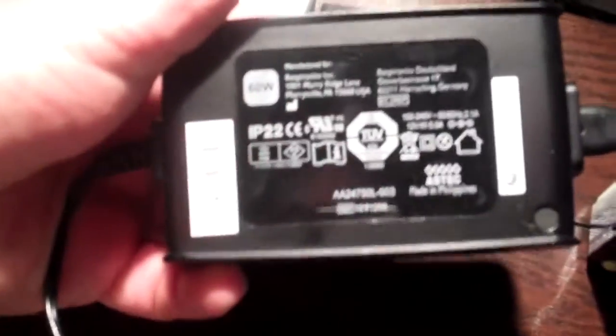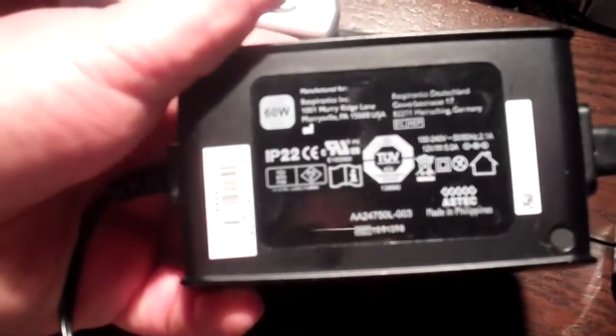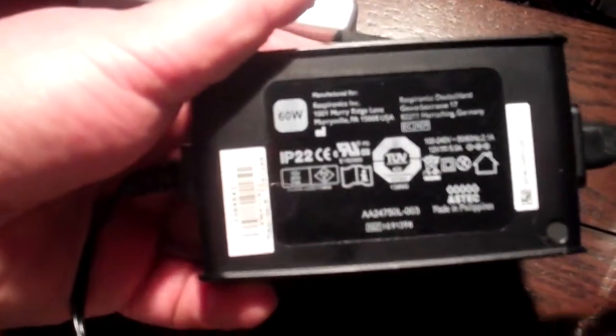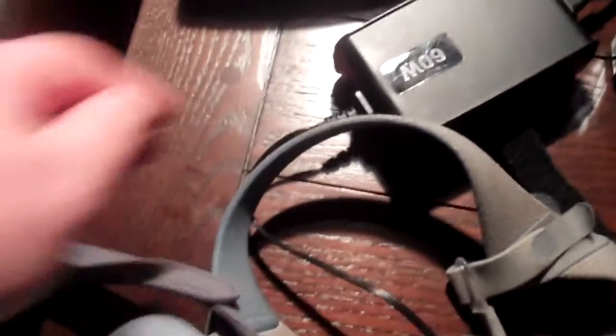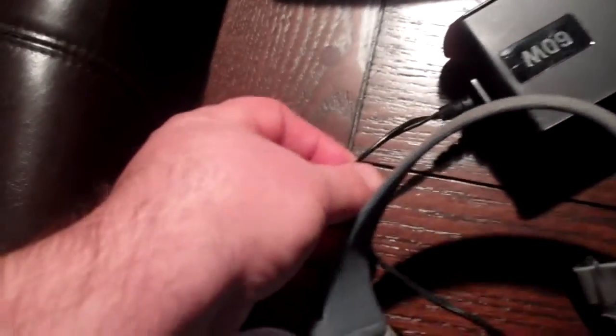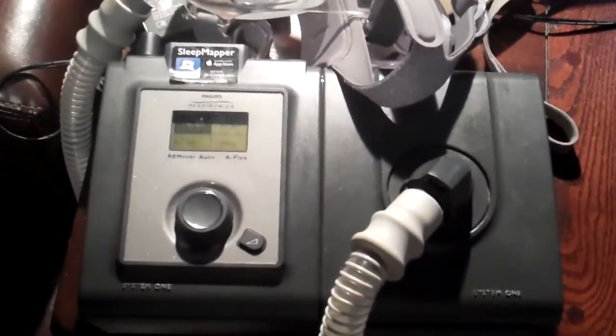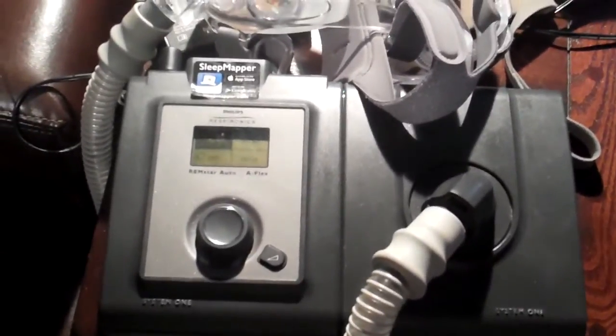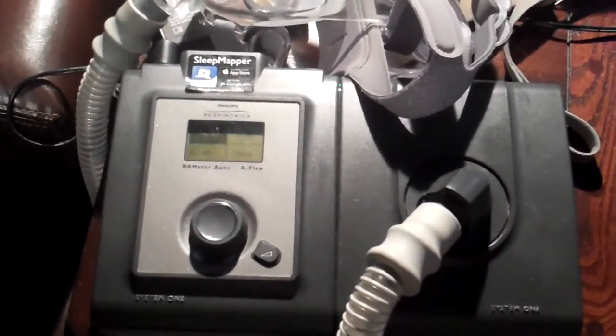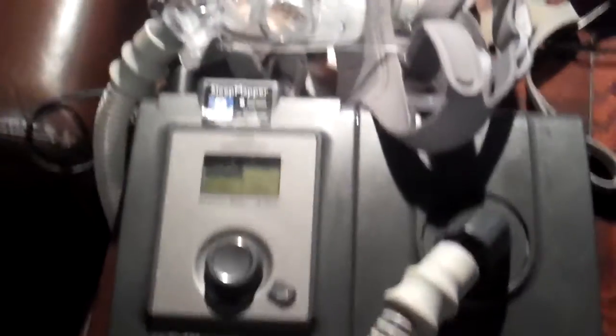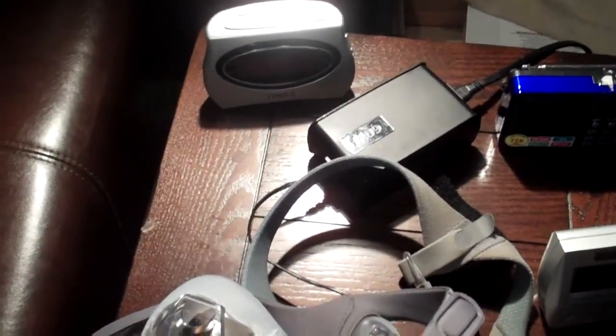And if you look at the specs, it'll tell you the voltage on here, and in this case it's 12 volts. And what I'm going to consider doing in an emergency - I don't have to do this right away because I have a backup generator here and so forth - is cut this wire, taking note of the polarity, and hook it up to a big giant 12 volt battery. And these machines, they don't draw a lot, so that should be enough to get you through six, eight hours of sleeping. And then you know, you use your solar or something to recharge the battery.